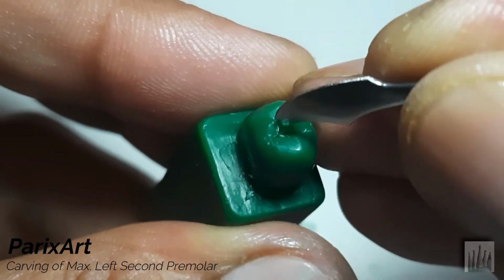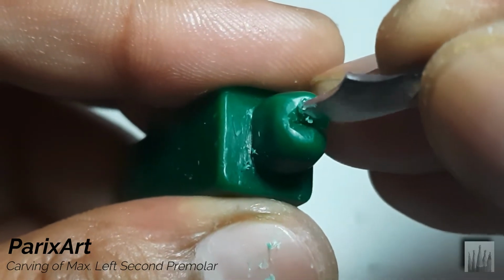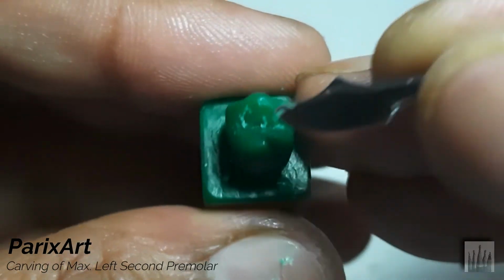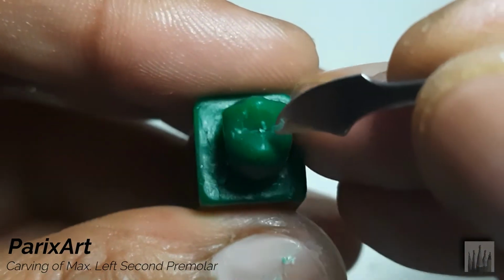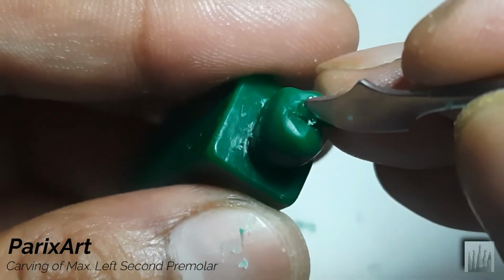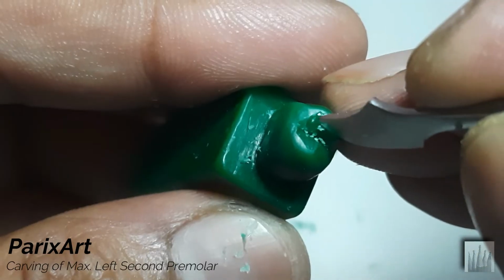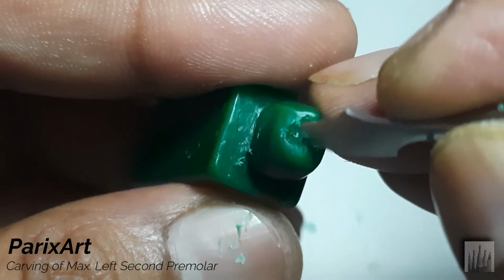Stay a little close to the cusp ridge. See, like this. Okay, continue. See how I'm gradually approaching the cusp ridge.